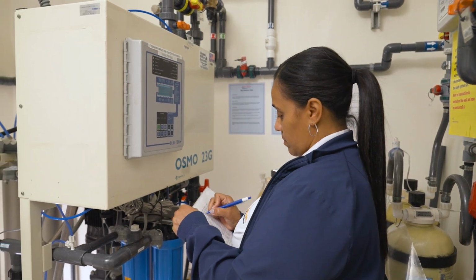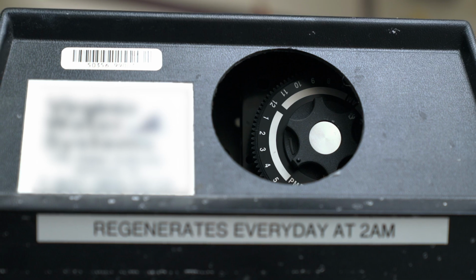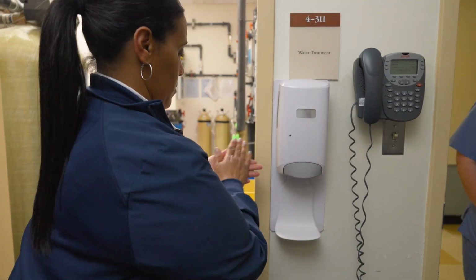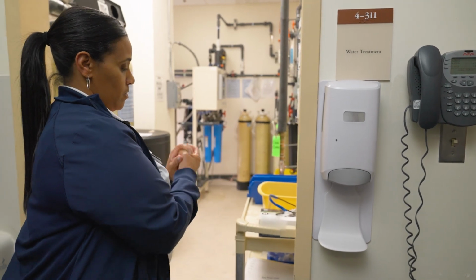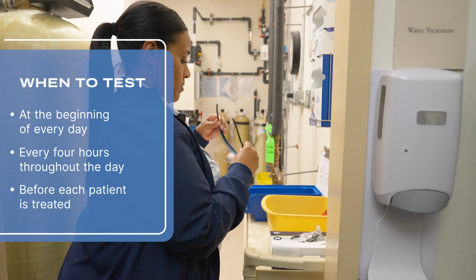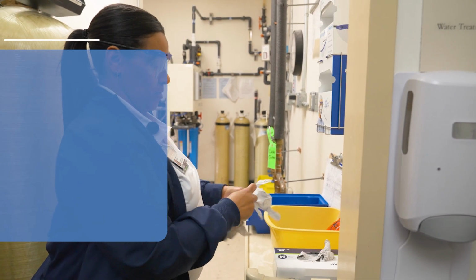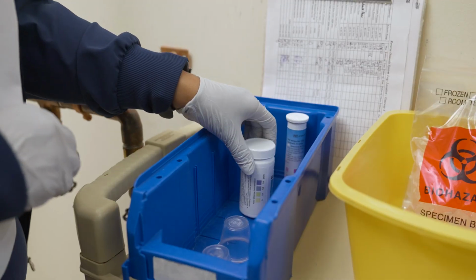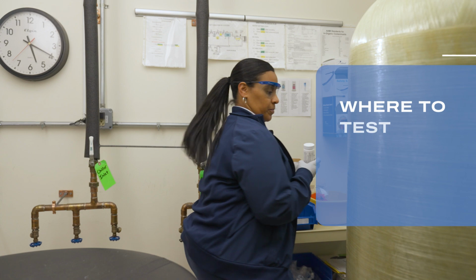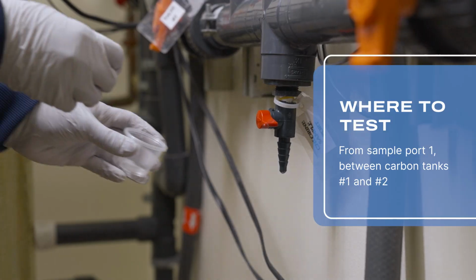Because RO systems and testing procedures can vary, it's important to familiarize yourself with your facility's policies and the machine's manufacturer's instructions for use in testing. Perform hand hygiene, don goggles and gloves. This test is to be done at the beginning of every day and every 4 hours throughout the day, or before each patient is treated. Grab the chlorine-chloramine test strips and a sample cup. These samples should be drawn from sample port 1, between carbon tanks number 1 and number 2.